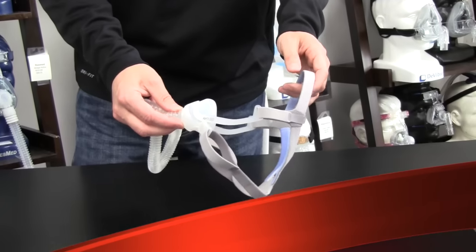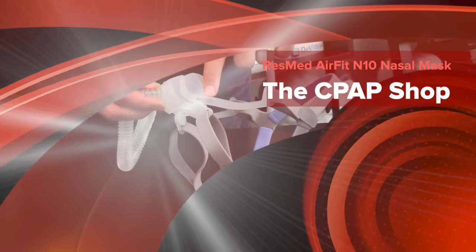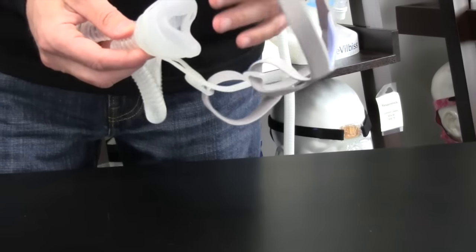Hi everyone, this is Chris from the CPAP shop. I wanted to show you ResMed's new AirFit N10 nasal mask, which is listed right here. AirFit N10, N stands for nasal. It's their newest nasal mask.